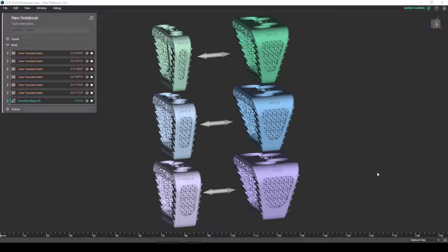Today I'd like to show a robust workflow in nTop Platform that a medical device designer can come to expect after gaining some familiarity with the software and creating their own workflows for their own medical devices. Our example product type here today will be an implantable orthopedic device, specifically the spinal ALIF.